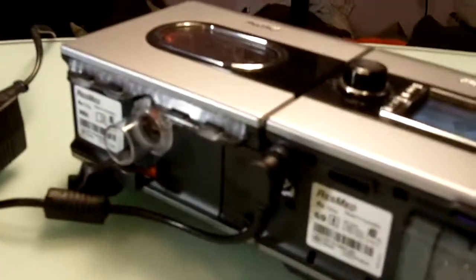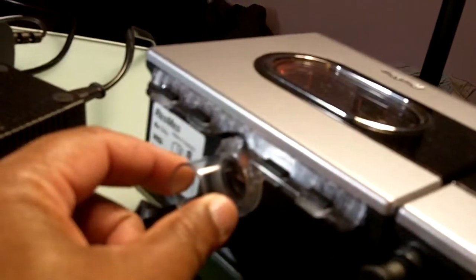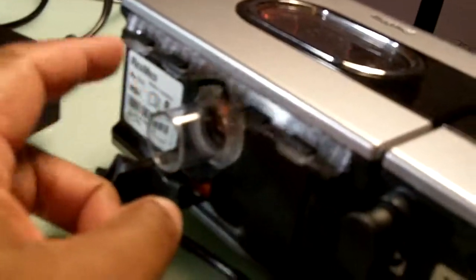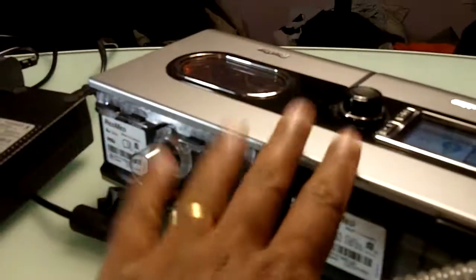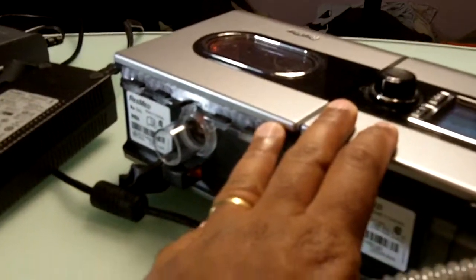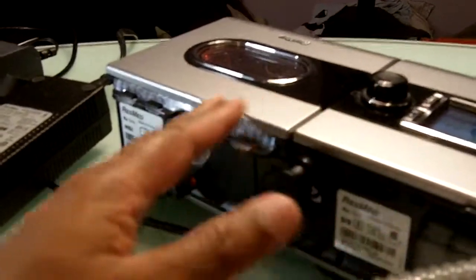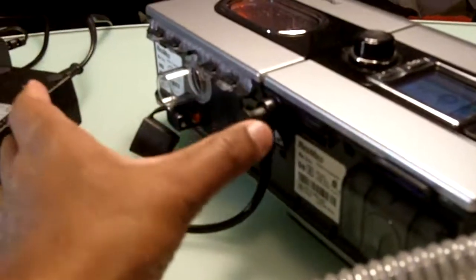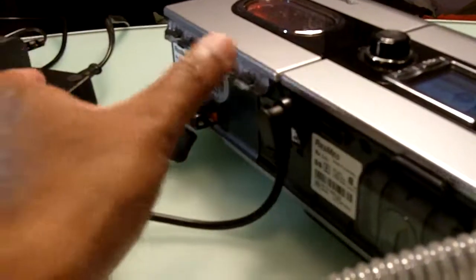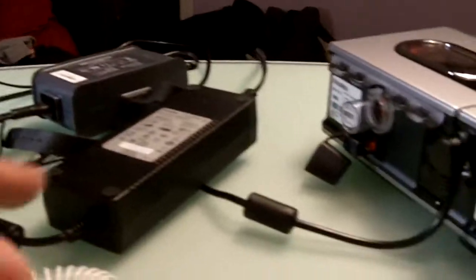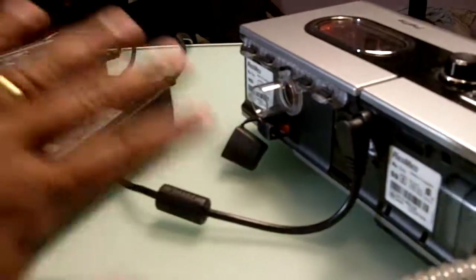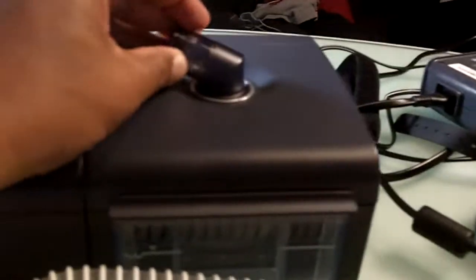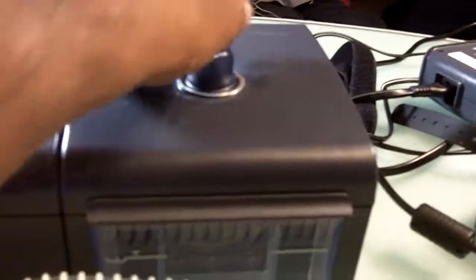In the ResMed unit, it is attached right here, in the back of the machine, and this doesn't turn. So placing it is kind of odd on the nightstand. Depending on how you place it, you might lose a couple of inches trying to get the tubing around your lamp or whatever to get to your bed. This is just so much more easier.